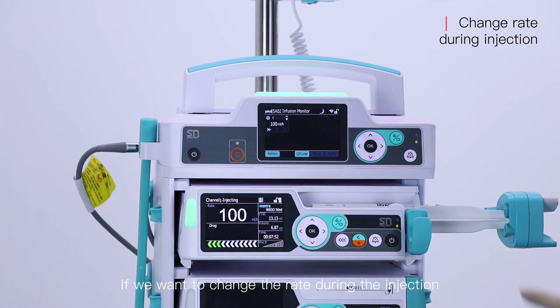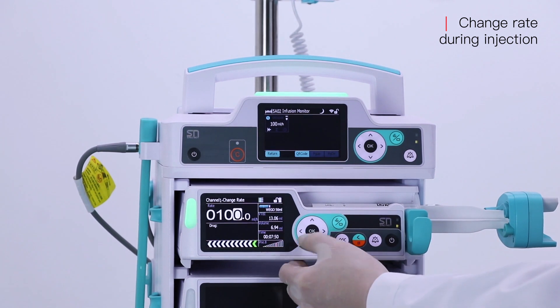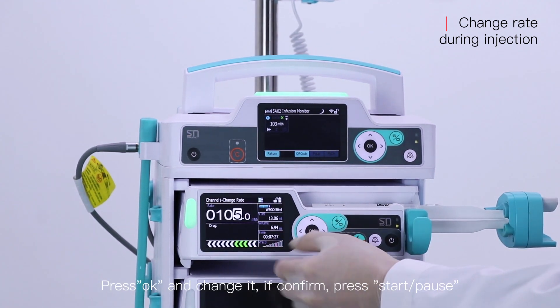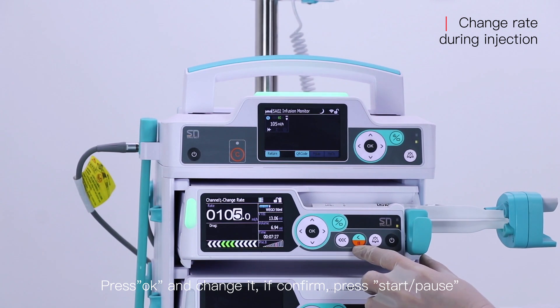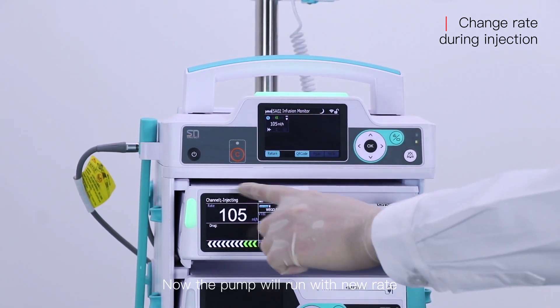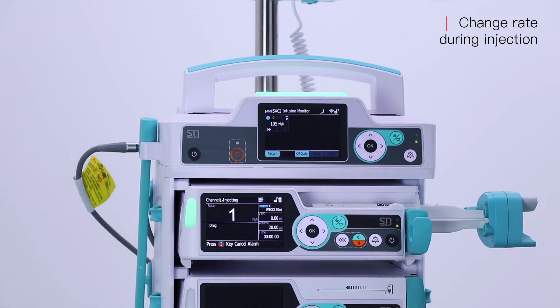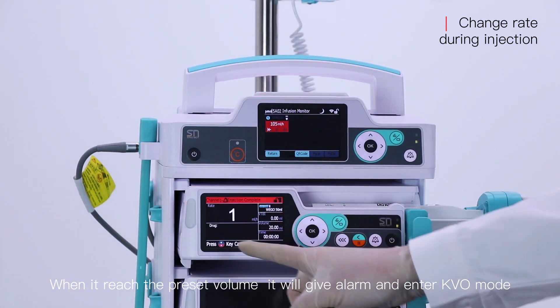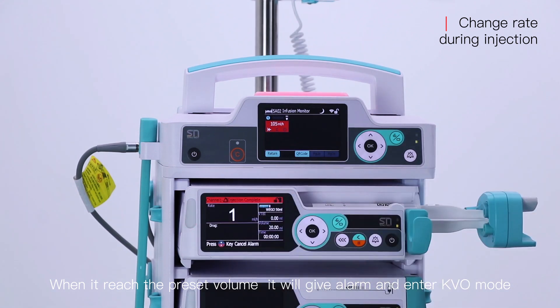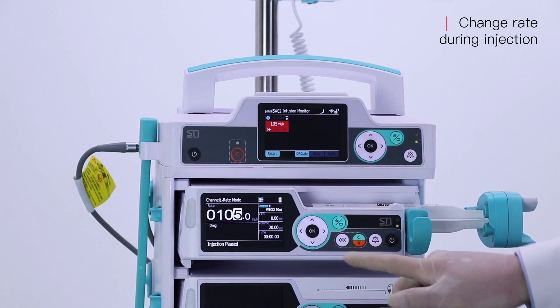If we want to change the rate during injection, press OK and change it. If confirmed, press start and pause. Now the pump will run with the new rate. When it reaches the preset volume, it will give an alarm and enter KVO mode. Press the start and pause button to quit it.